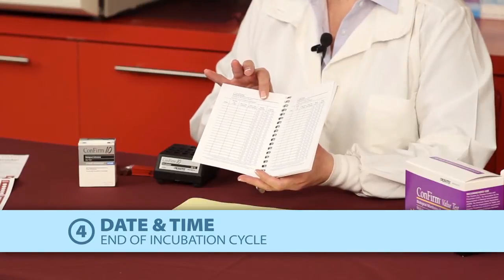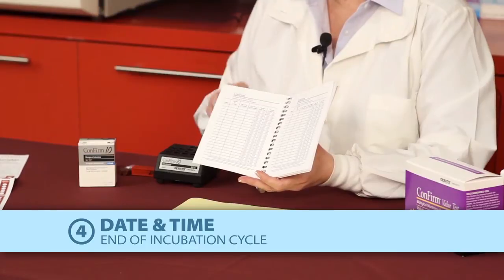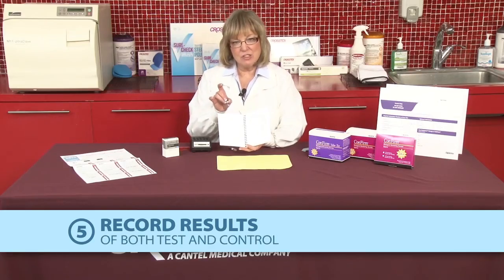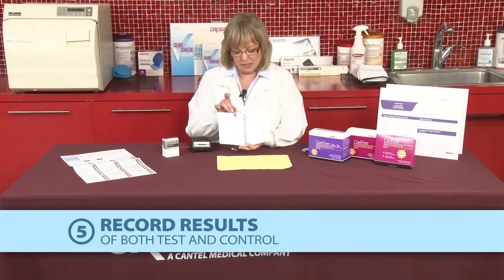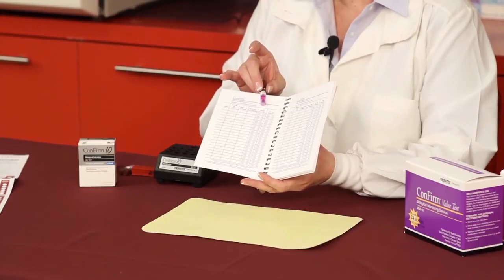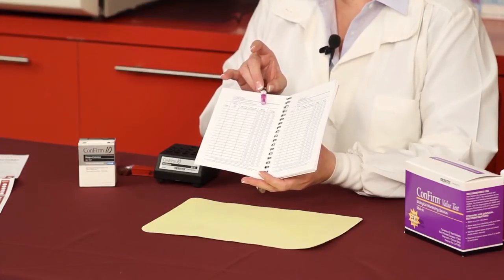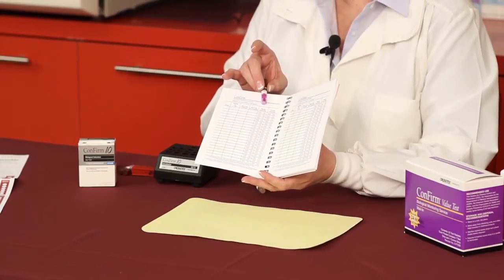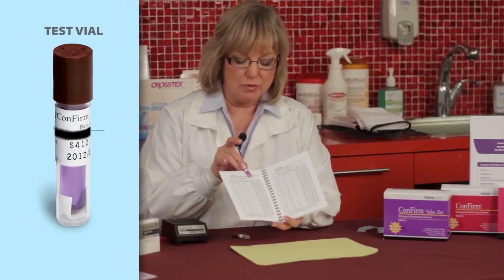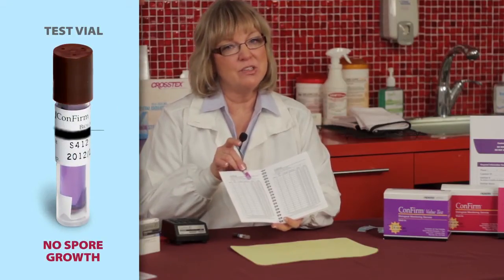Finally, they're going to want to record the result of both the test and the control. If we assume that this is our test vial and it's run through the incubator for 10 hours, we look at it and the color of the liquid has not changed, which indicates there is no spore growth, which means this particular test has passed.